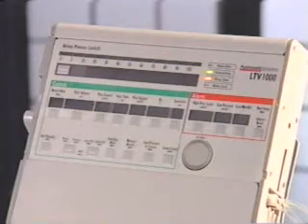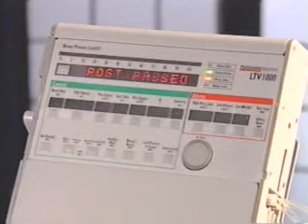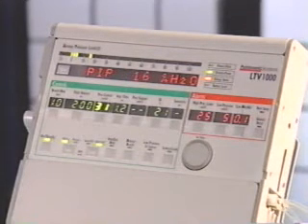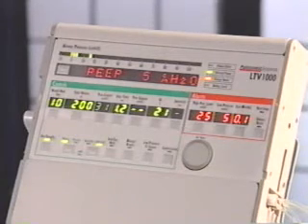When the ventilator is first powered up, the transducers require up to 60 seconds of warm-up time before they will operate within their normal tolerances. During this warm-up period, the ventilator will not allow you to run the leak test or calibration. If you select an operation that is not available during the warm-up period, the warm-up message is displayed. When the warm-up period has expired, the message is removed.